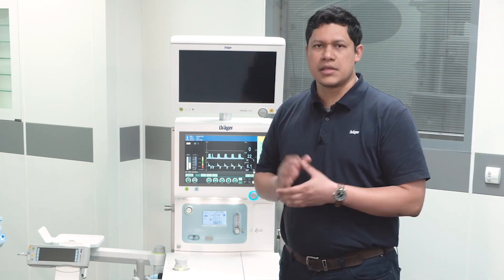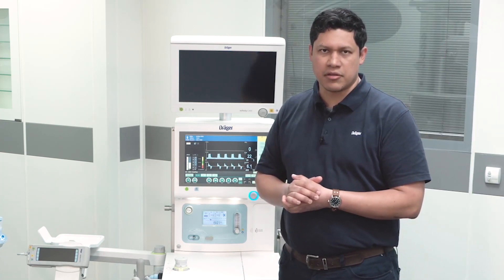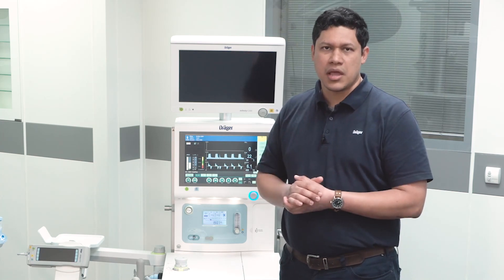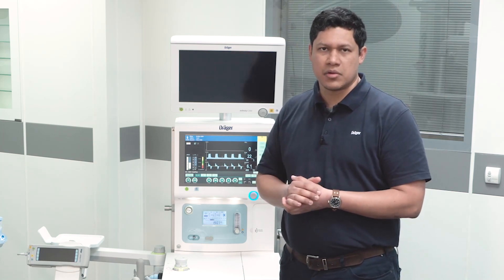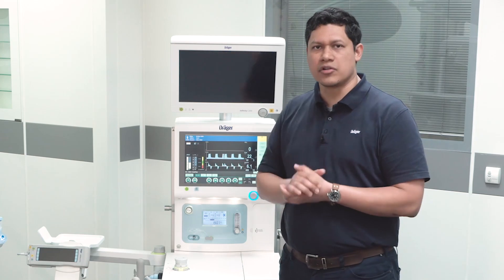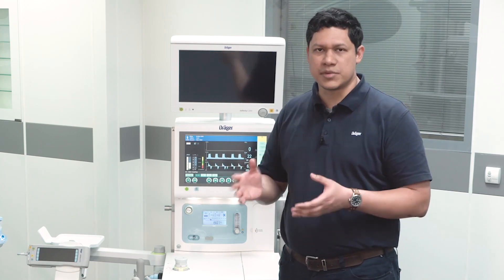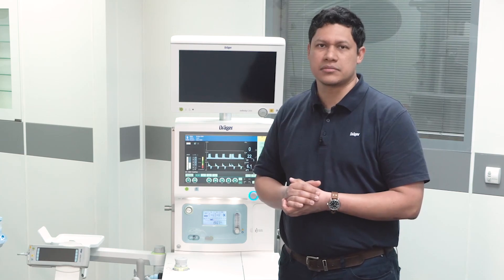The anesthesia device should be checked through the self-test under normal conditions every 24 hours. When used for long-term ventilation, it must be checked at least every 72 hours.